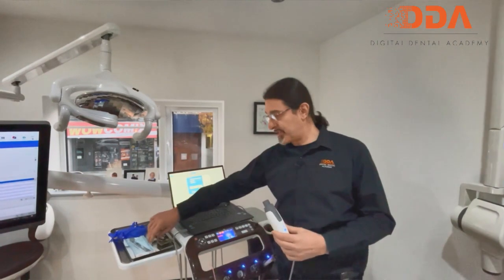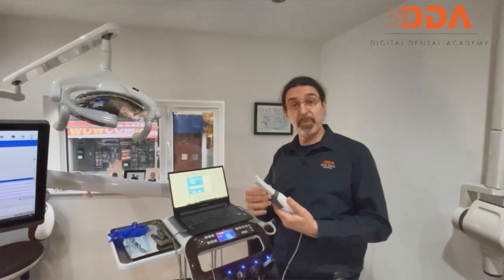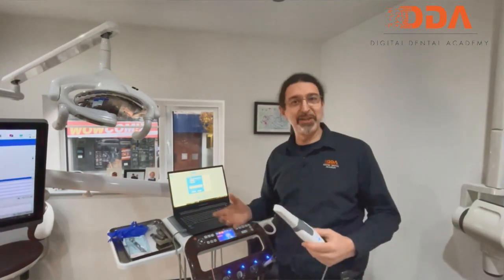It's a triangulation camera, hence it has a very small profile that goes in the mouth. It has interchangeable tips, which make it really nice for sterilization, as well as disposable tips. It's a really simple device to use — let's call it digital alginate.